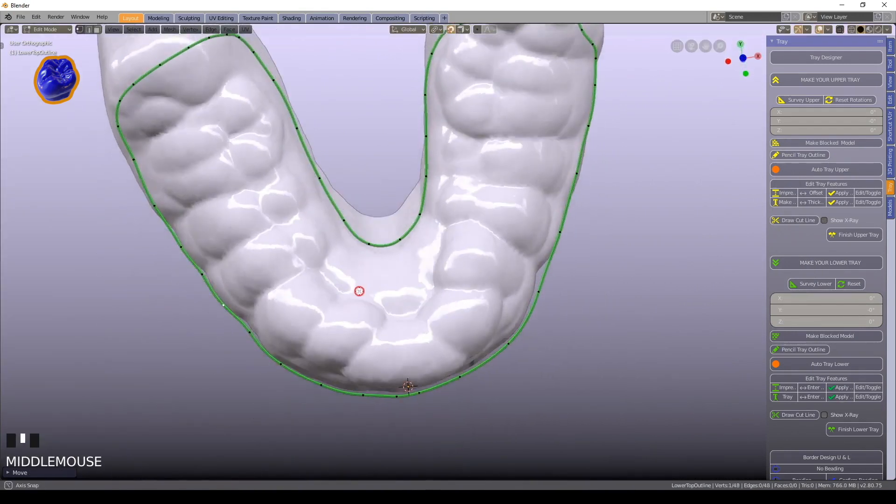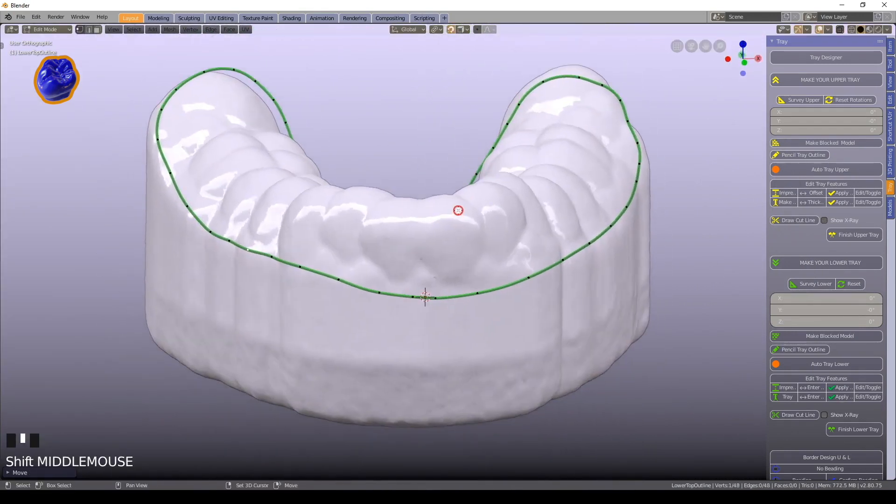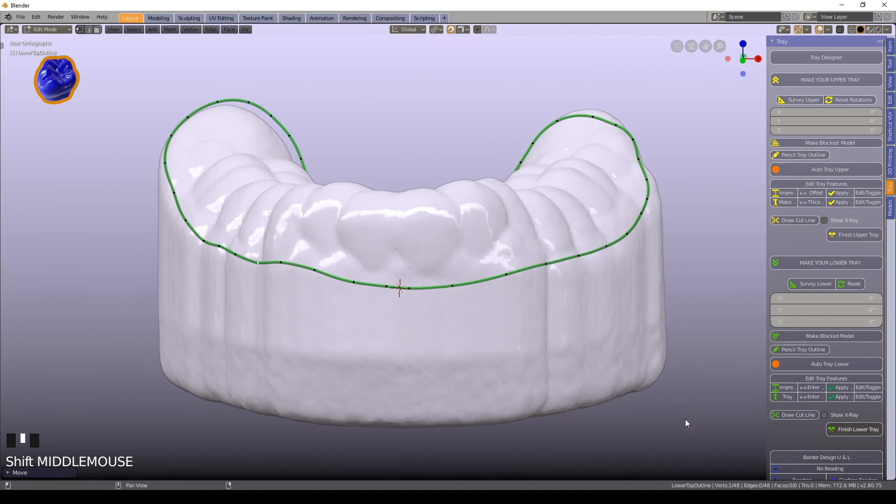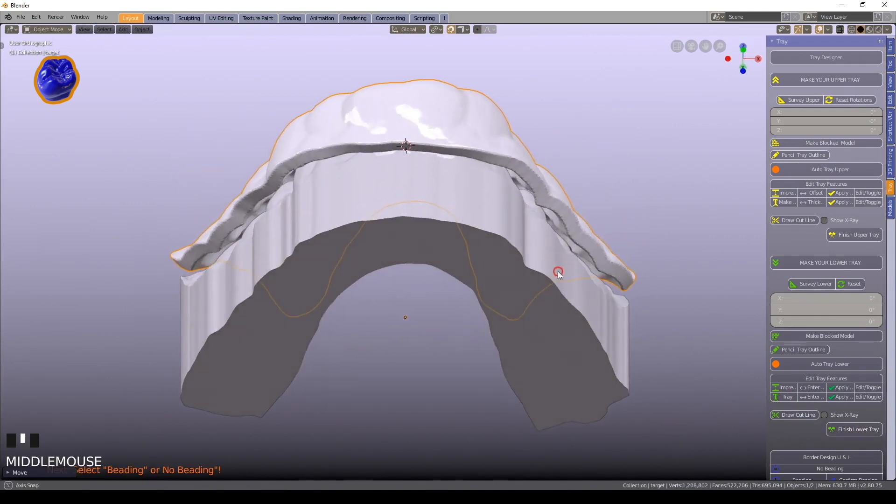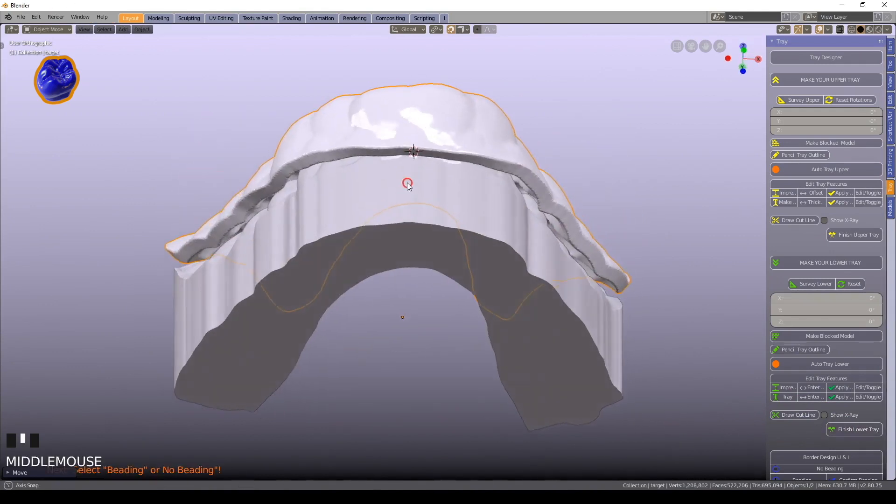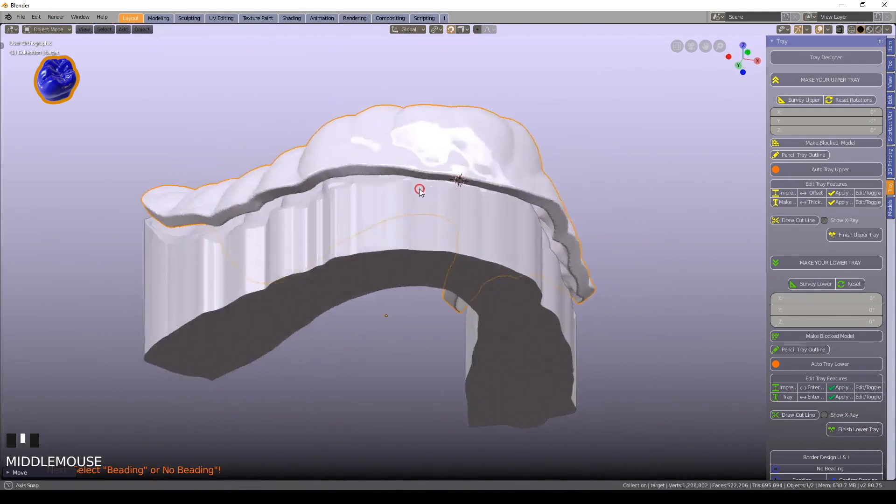Enjoy Blender's amazing visual effects while following the easy tutorials. All aspects of the custom tray are fully adjustable.